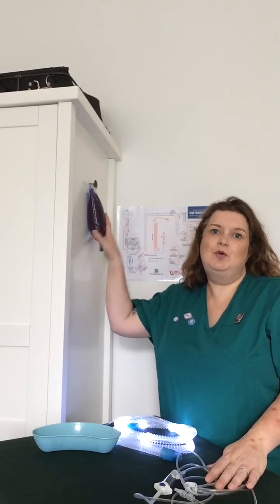Hi everyone, it's Jane RVN, and this time we're going to be running through our fluids through our giving set to OSCE standard. This links into our previous two videos on setting our bag up and setting our giving set up. I've put some dye in the bag so you'll be able to see it run through with me.